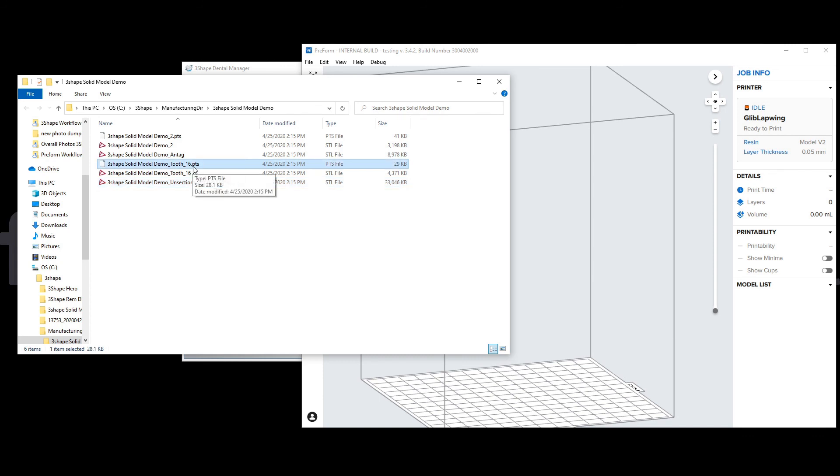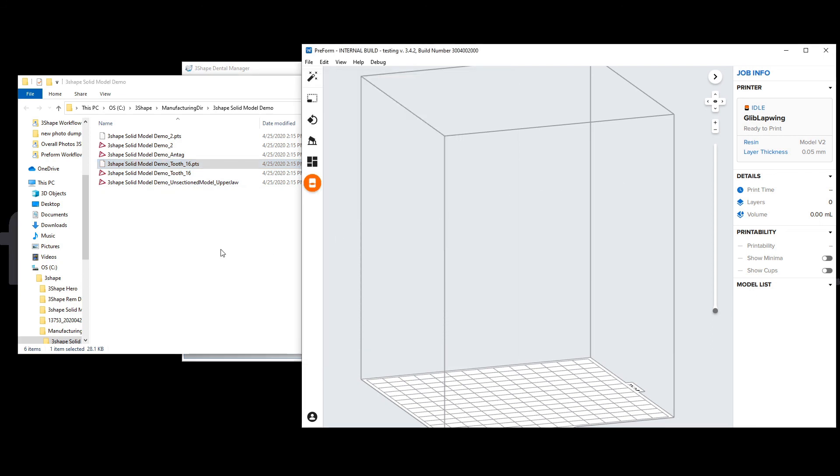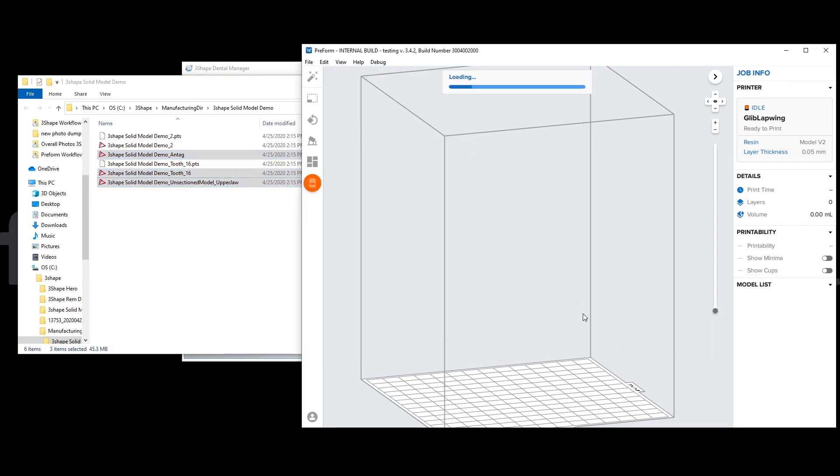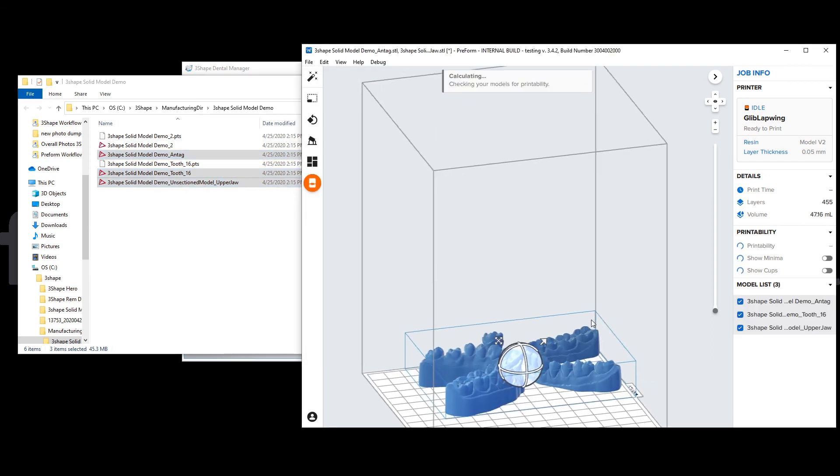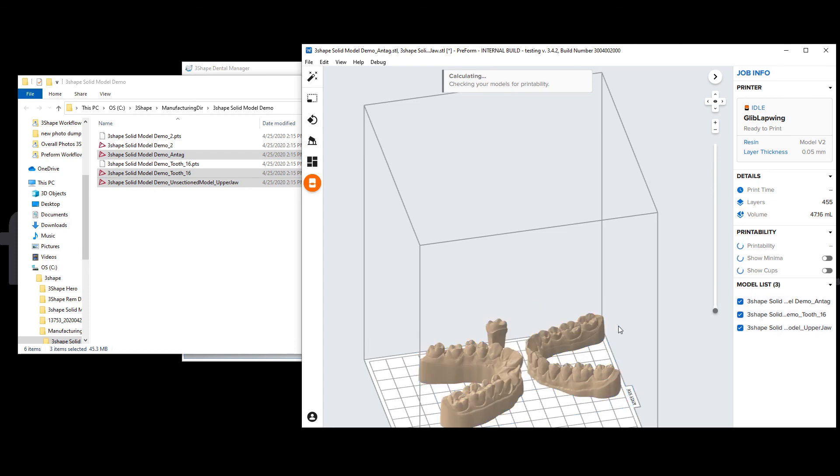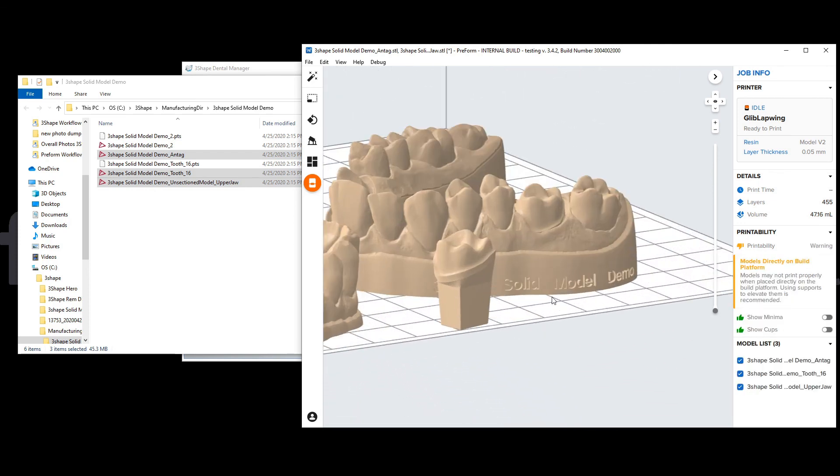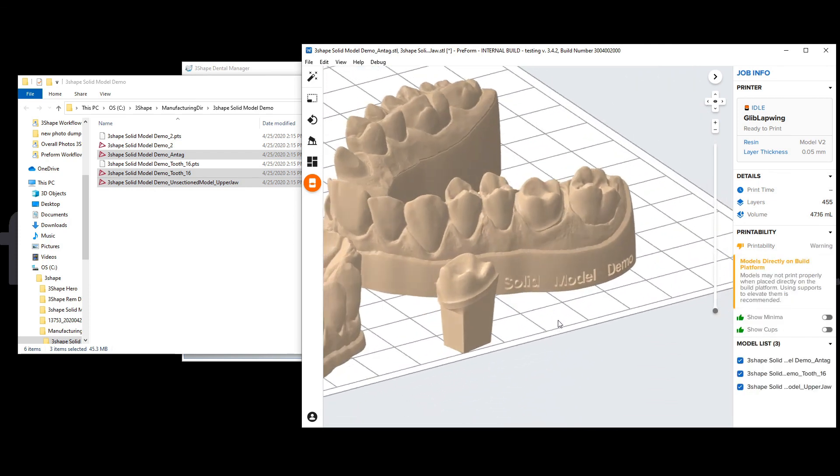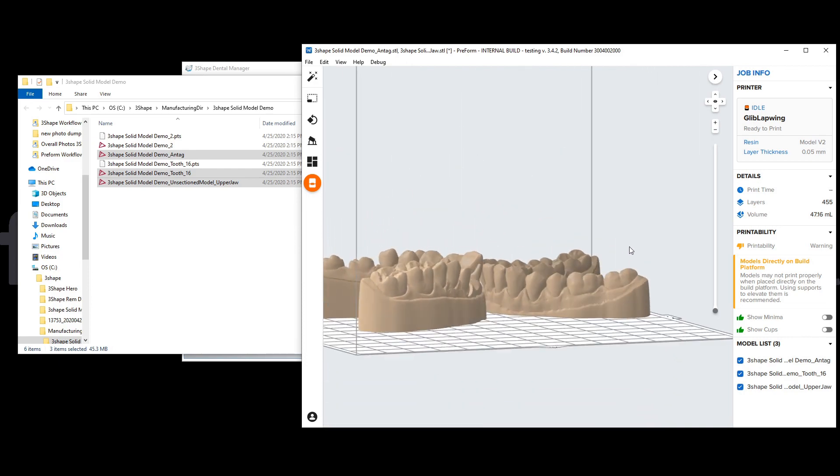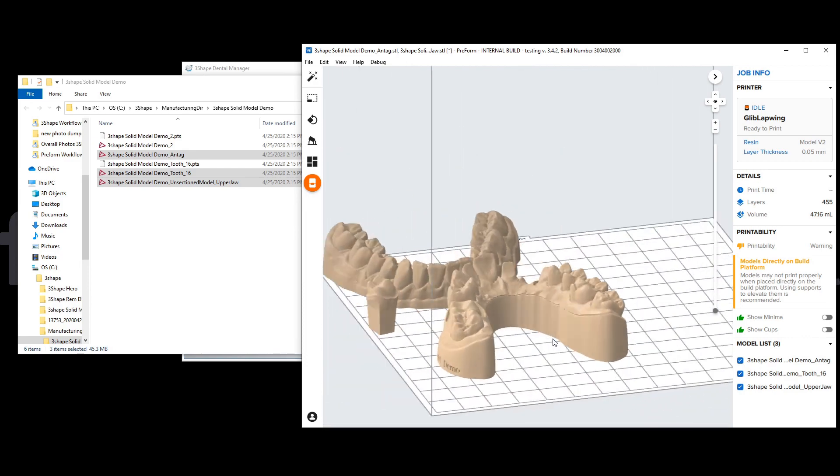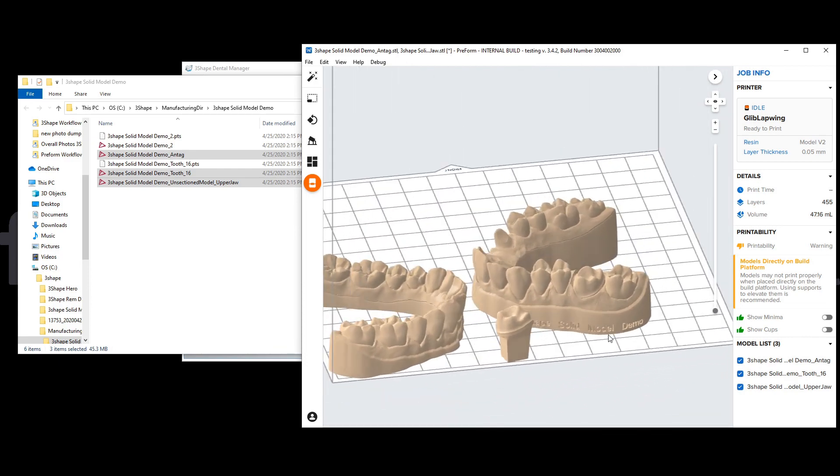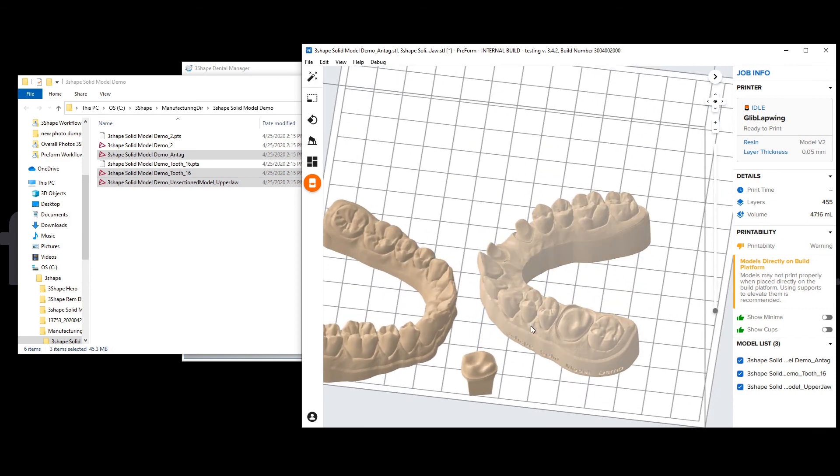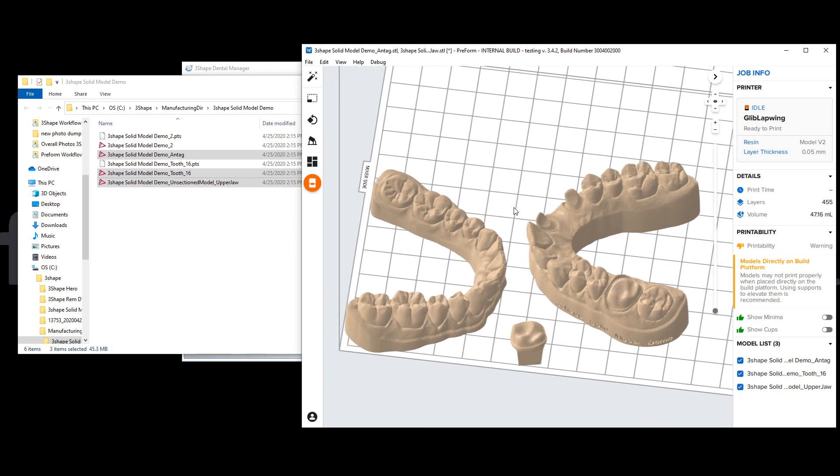I have PreForm open here and I'm just going to drag them in to show. I'll just avoid the .pts files and drag those in. This will be our model kit for this number three upper molar. You can see here we have our die, the antagonist, and the operative arch looking very nice. Now you'd be able to go in and proceed to the PreForm stage of nesting and preparing this job for 3D printing, which I cover in another video. If you look at the restorative model guide for Form 3B from Formlabs Dental, thank you. Hope this is helpful.